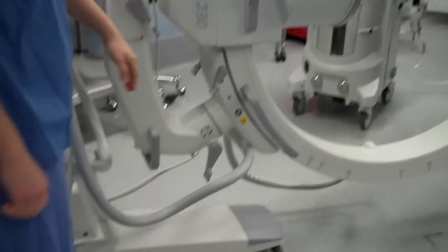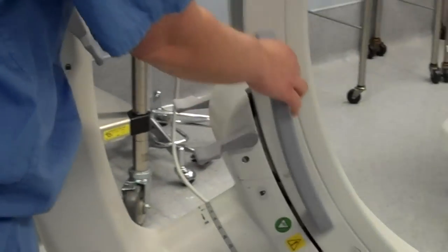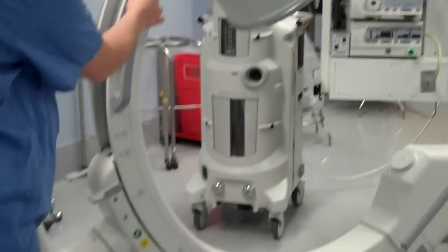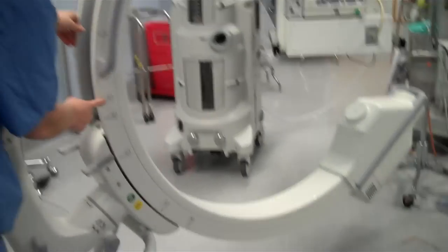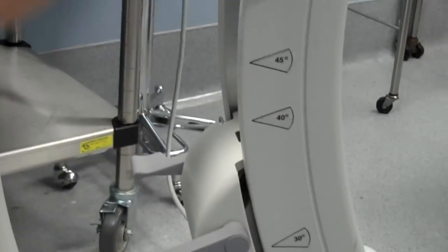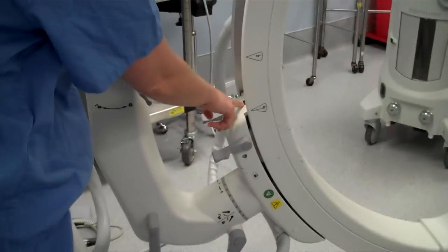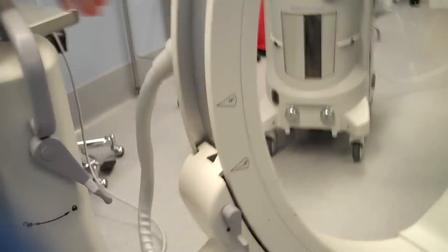In order for it to stay, you need to re-lock the monitor. To see how many degrees you're angling, they're written right here: 10, 30, 40, 45, and there are hash marks all along the C-arm right there. To zero out this lock, just put the zero right here at this black hash mark and re-attach it.